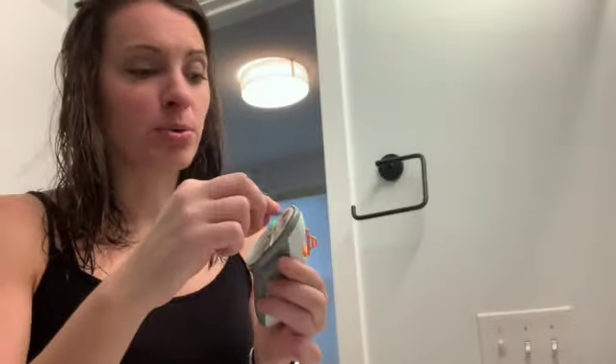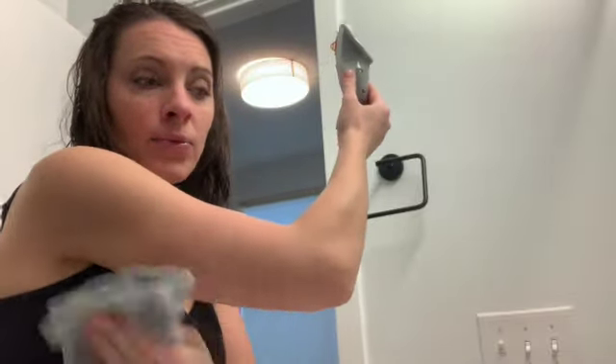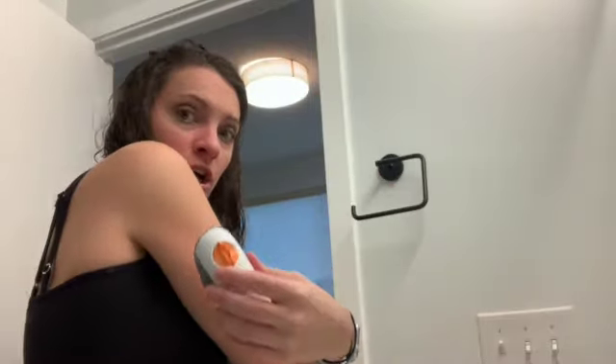I just scanned this in the app. I would have shown you how to do that, but I'm recording this on my phone, so I can't. It takes two seconds though. Once you're done, pull this off — underneath is sticky. Before you do anything, you're going to want to wipe your arm, which I also just did. You want to use soap and water or some wipes to make sure there's nothing on your arm prior to putting on your new CGM.